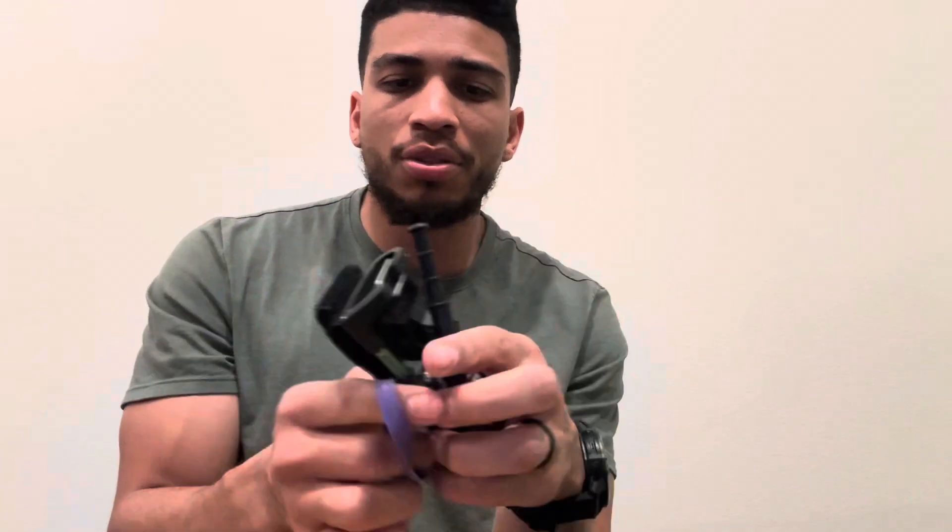This is not a paid advertisement — they didn't pay me to say this. I'm just trying to give you guys some education regarding tourniquets. There is a lot of talk on how to properly stage tourniquets, what's the best way, what's the worst way — as if any of that matters. Wear the tourniquet or don't wear the tourniquet: that is going to be the difference between someone living or dying. Just stage the tourniquet however you see fit. I wrapped a rubber band around it just to tighten it down a little, but I also just use the manufacturer's recommendation, and that's totally fine.